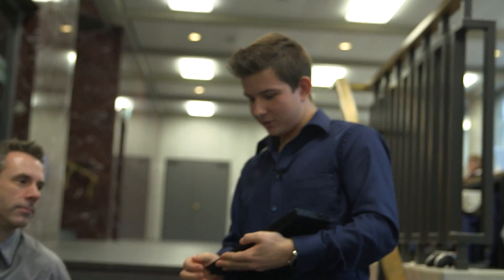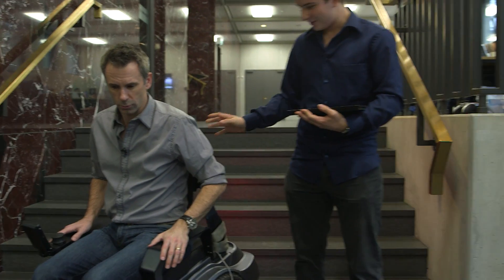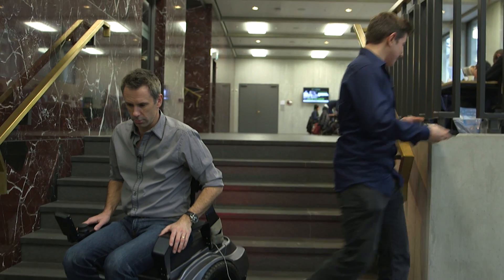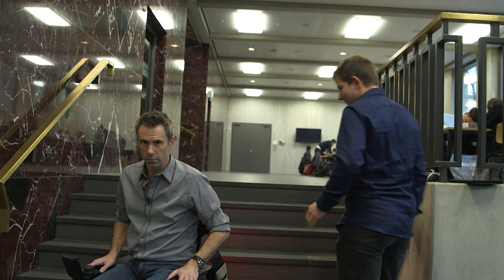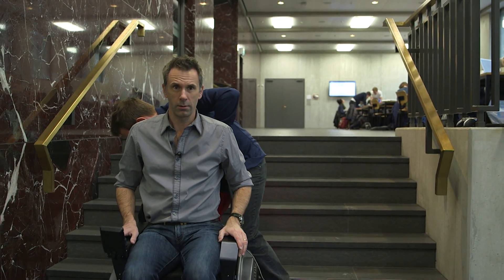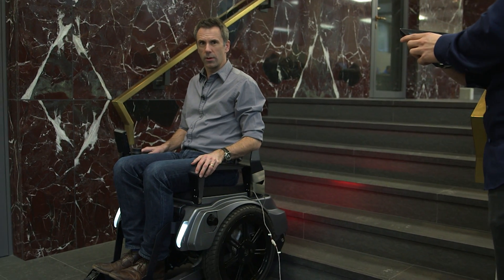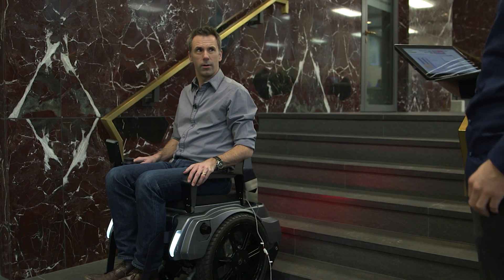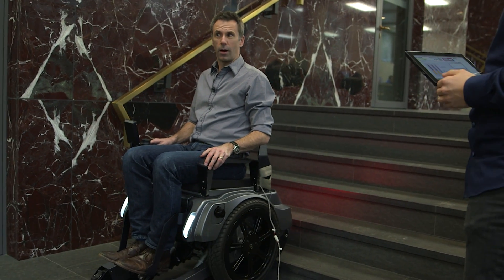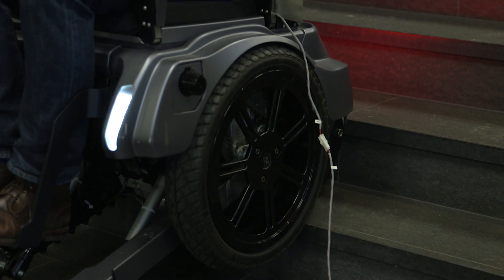I got on the X button. Now we can manually... I don't know what's happening here. Let's see if it's leveling. So basically you should always sit upright. I'm sitting upright, and the chair will make it so. The chair automatically corrects any leaning that I may do.